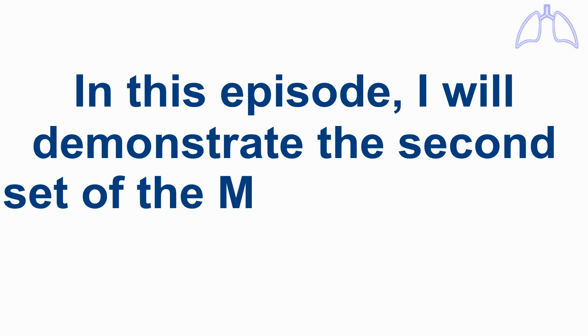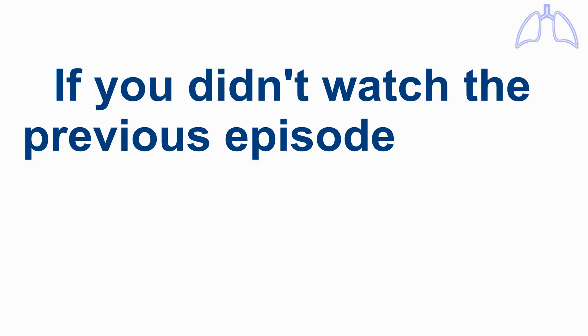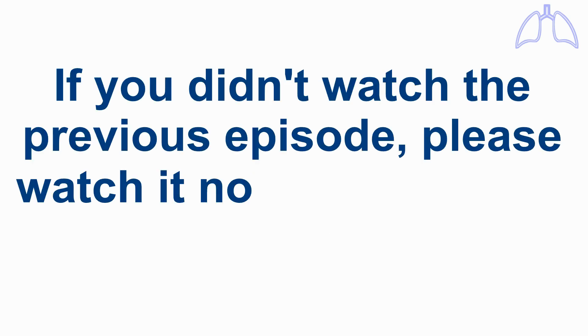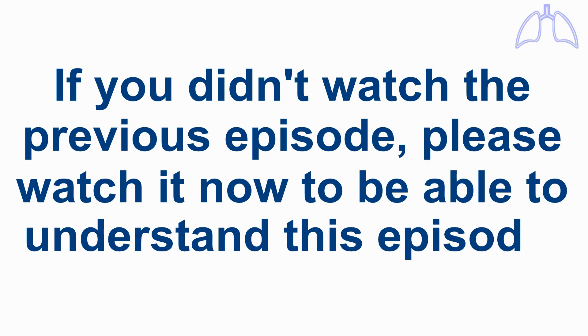In this episode, I will demonstrate the second set of the Medtronic PB560 ventilator parts. If you didn't watch the previous episode, please watch it now to be able to understand this episode.